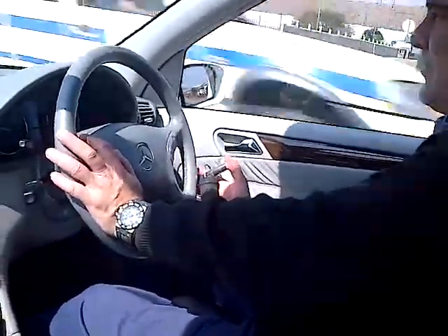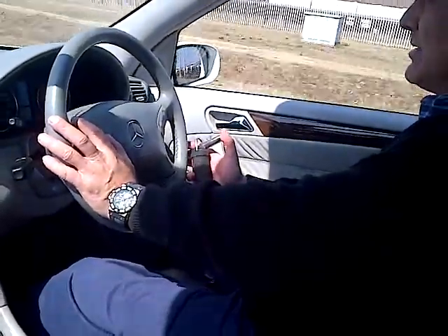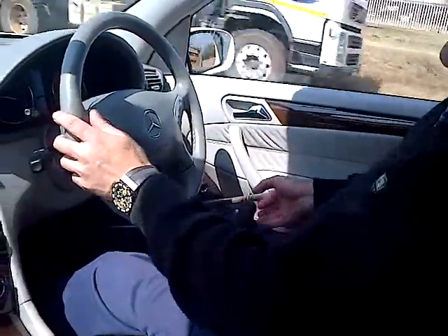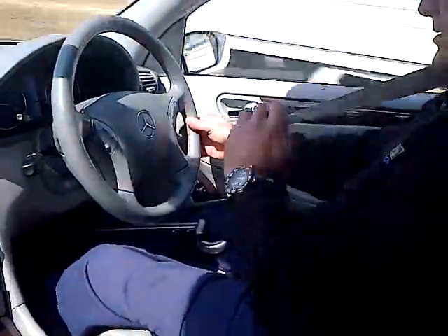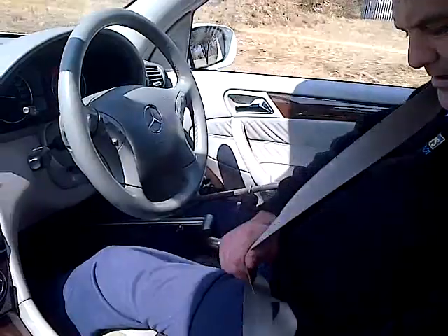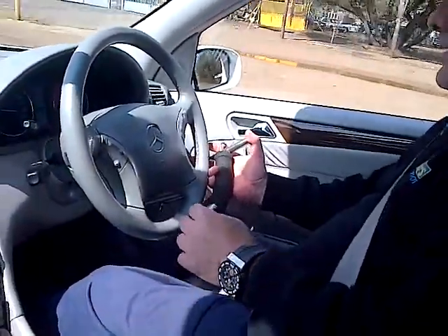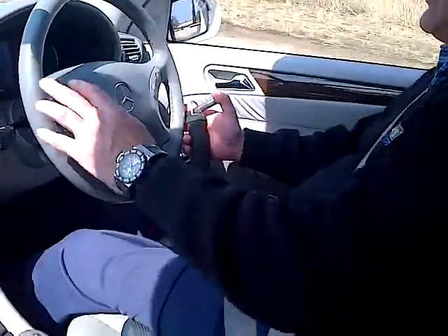You need sufficient power in your right hand to be able to brake sufficiently. We don't have our safety belts on right now — let's just put on our safety belts. There we go: pause and cover, pause and cover — not too much there.